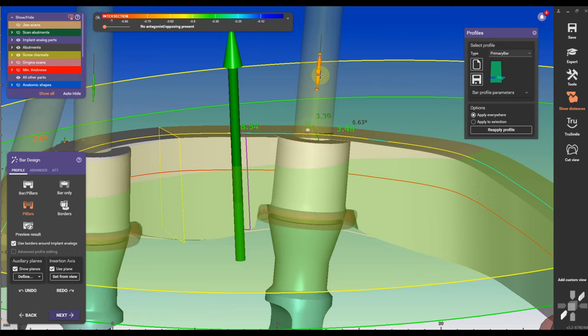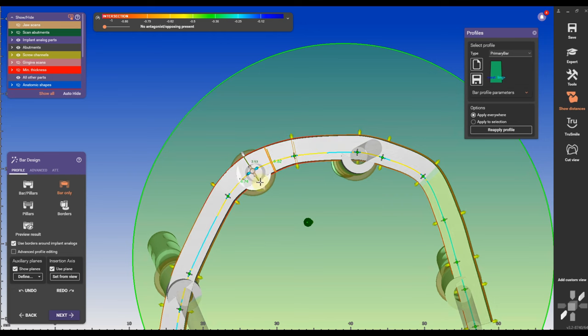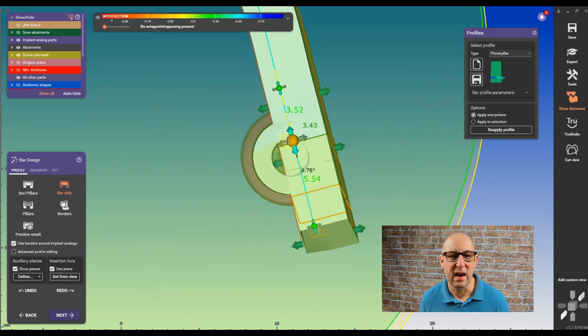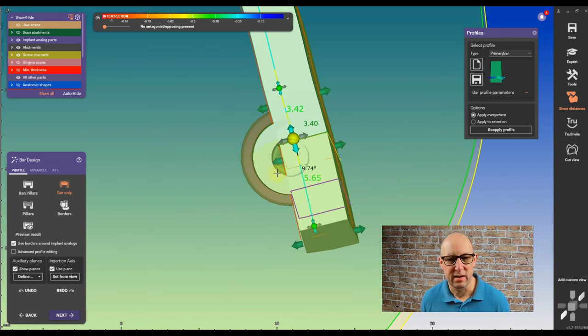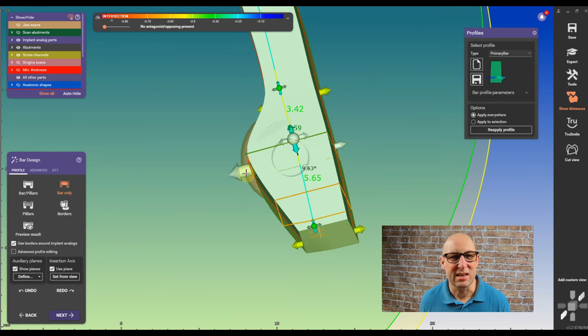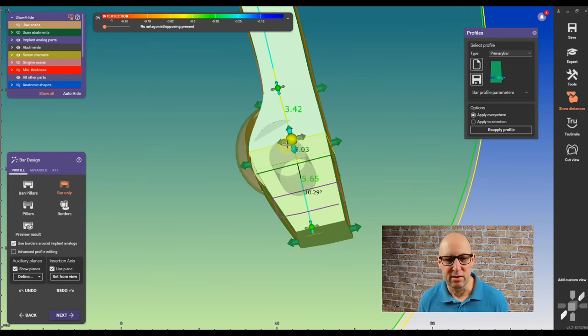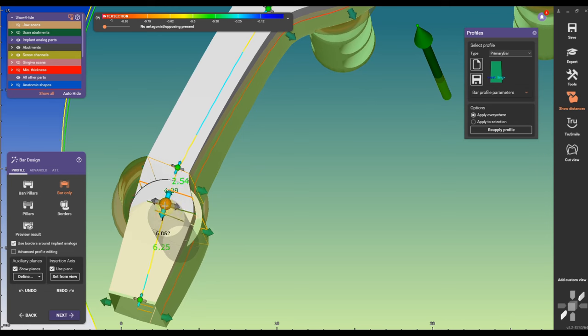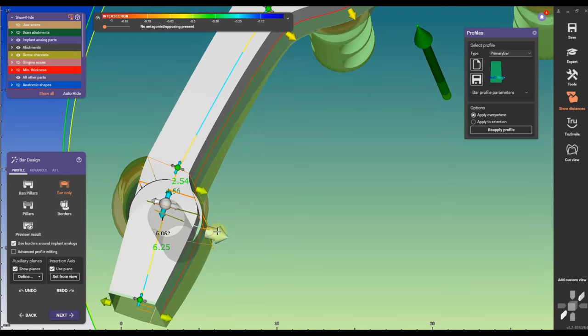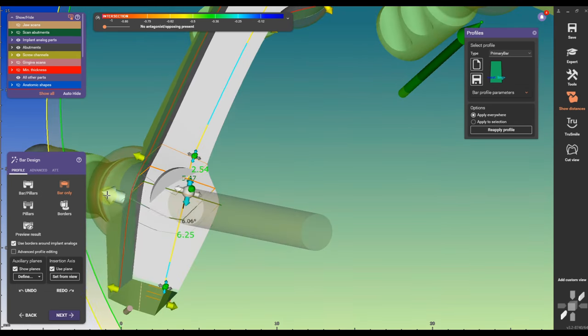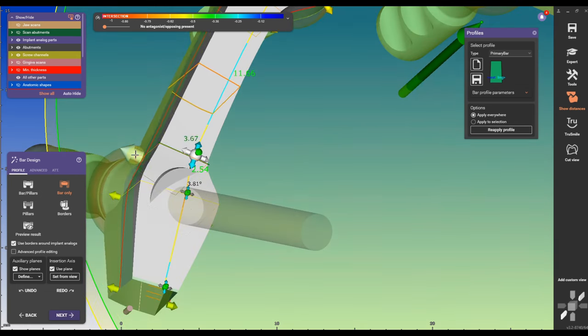And then I'm going to move the little dots in the middle of the pillars and make them thick because you want to have a parallel surface of the bar. You cannot have the pillars in there when they are tilted and when they are going all the different directions. That doesn't create an even insertion direction so make sure you're going to tilt those out a little bit. If you want to add another point hold the control key, click on the line and you can add another point.